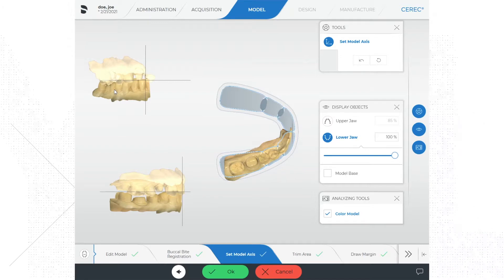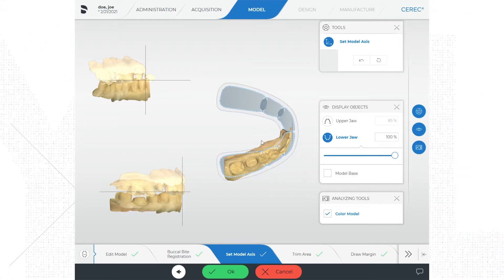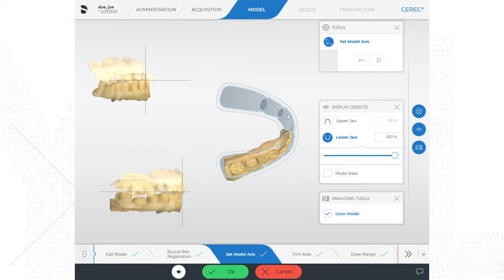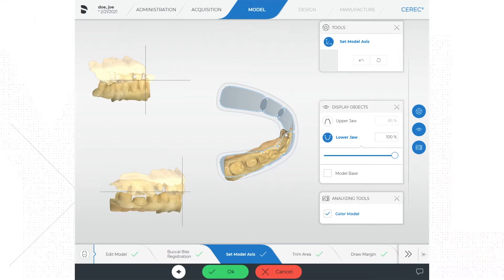I like to start setting the model axis by working on the overhead view of the model in the center of the screen. You can see your digital scan overlaying an arch template. If you look closely at this template drawing you will see that on each side of the arch there are distinct areas where the molar should lie, where the premolar should lie, and where the anterior teeth including the incisors and canines should lie. You will also notice a line that annotates the midline, which is especially helpful when working in the anterior.